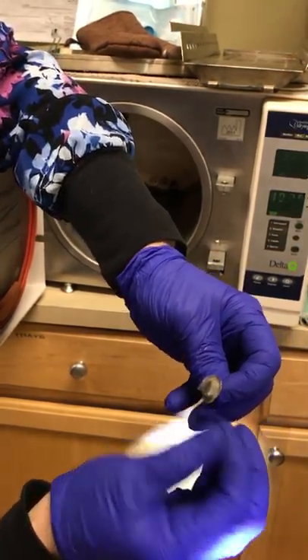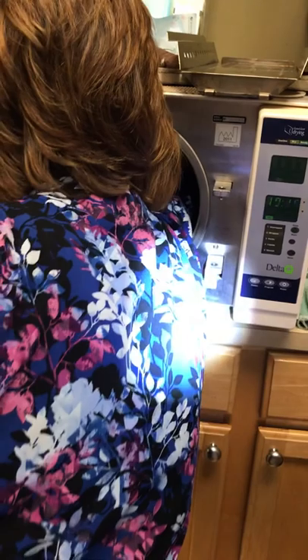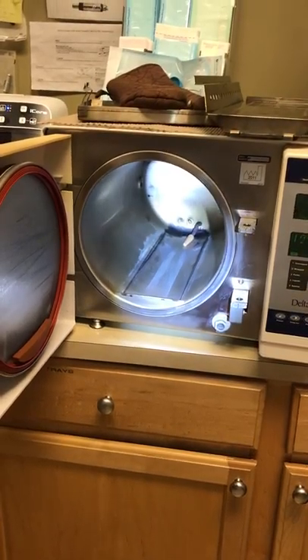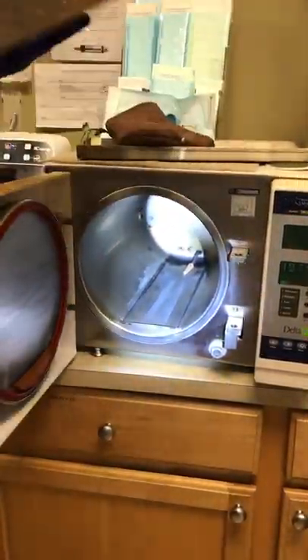There's no cotton, no burrs or anything on it. Put it back in. Be careful not to burn your arms in there — this is after it's hot. I burned myself doing it, so don't do that. Then put this back. You want to wipe down your trays in the sink with soap and water, rinse really well.